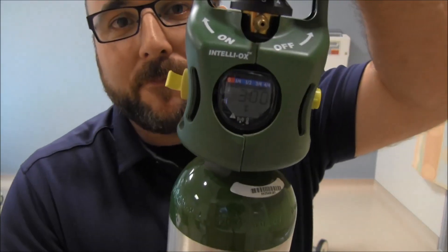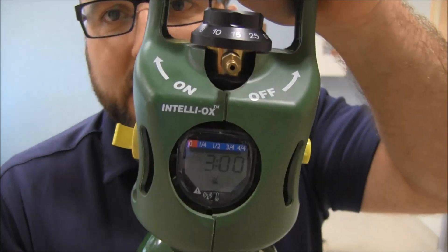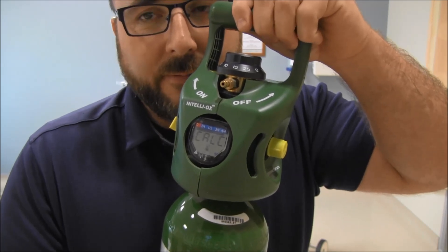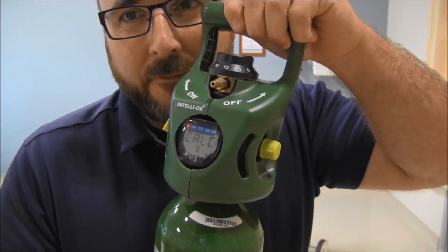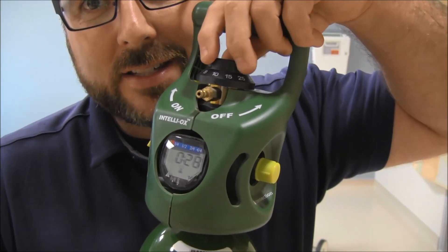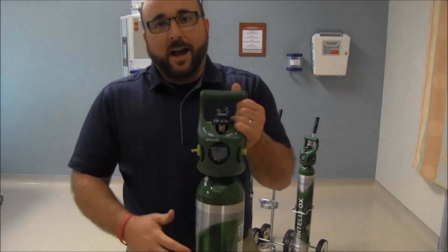Let's take the same patient and put them on a non-rebreather at 15 liters per minute. It's calculating down at 15 liters — 28 minutes. That's a perfect countdown for 15 liters. If we adjust the flow it will recalculate, but on 15 liters: 28 minutes until it goes empty. That makes a lot more sense than just saying we're at 500 PSI.